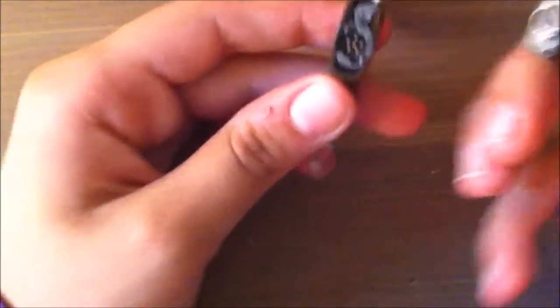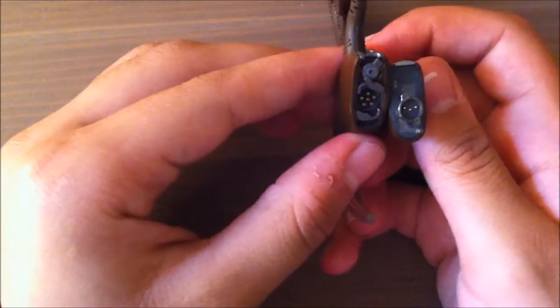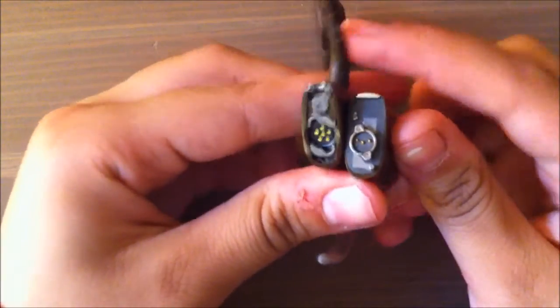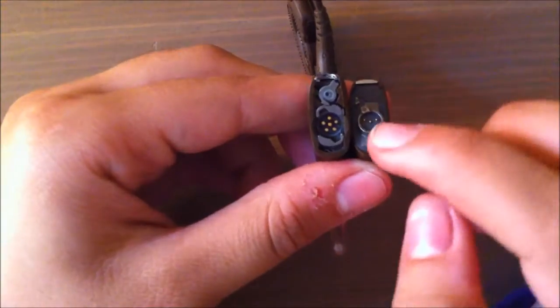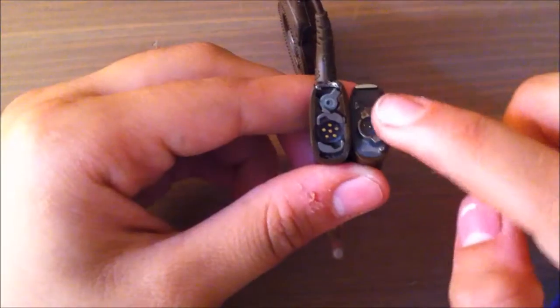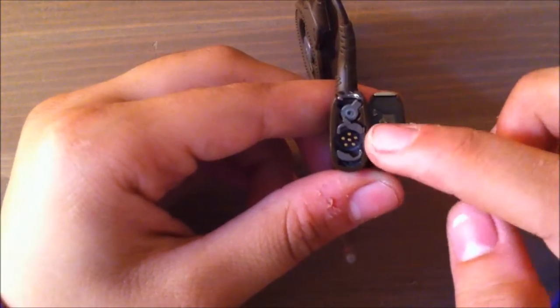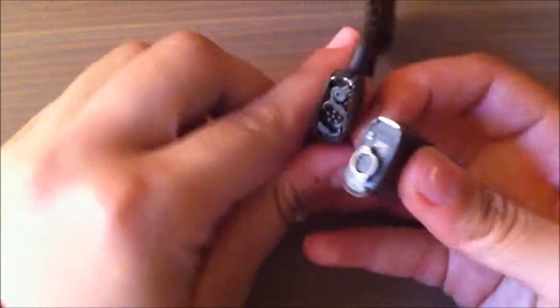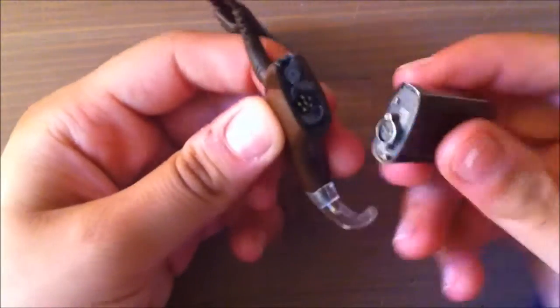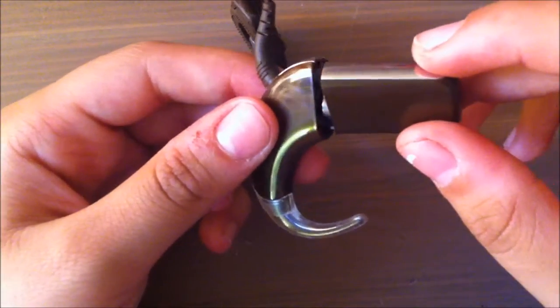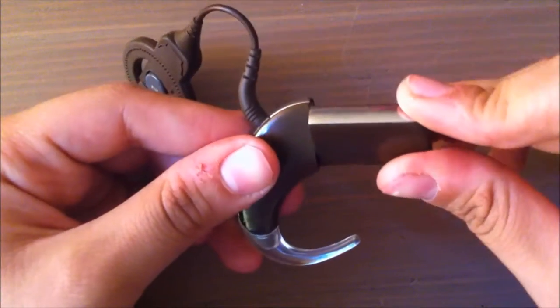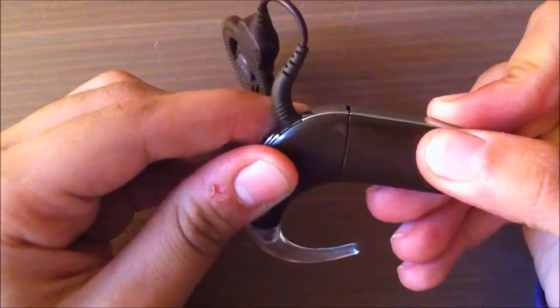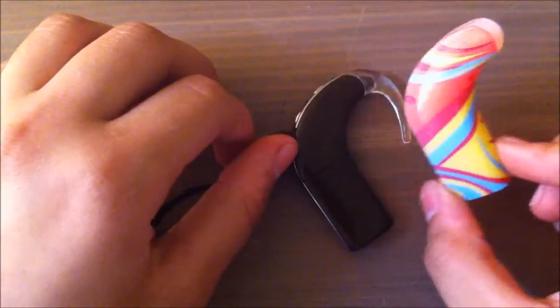To put the battery back in, it's almost like a puzzle. You can see this shape over here on the battery can go into this shape. You just kind of have to fit it in like that and twist it, and it's connected.